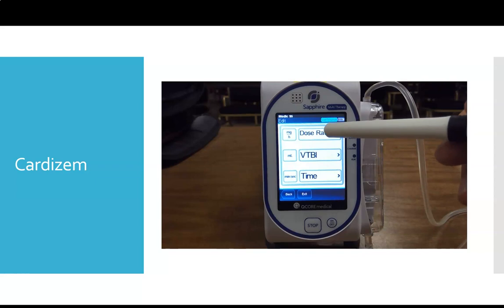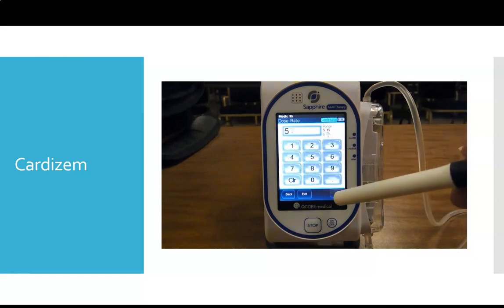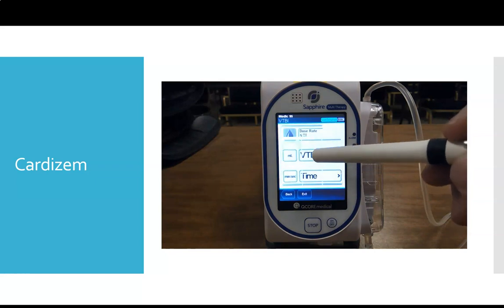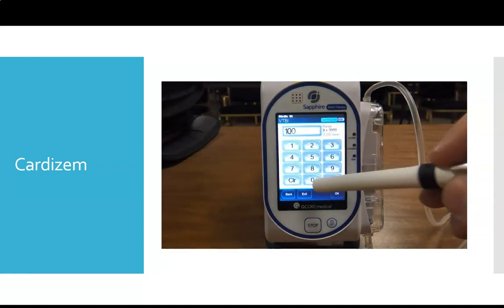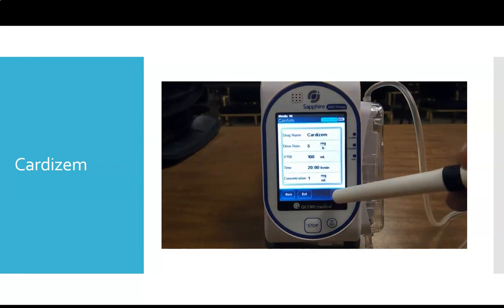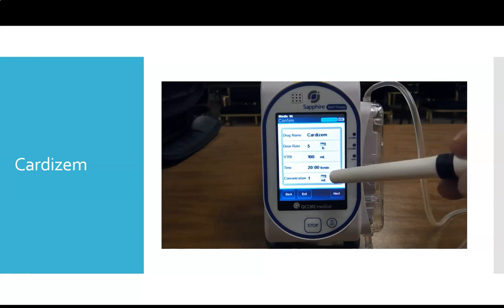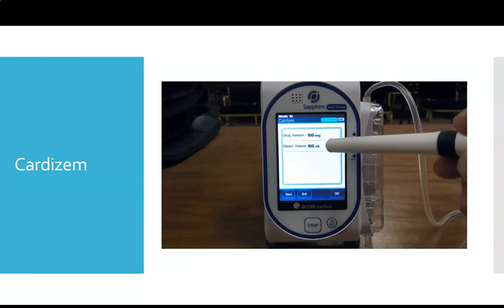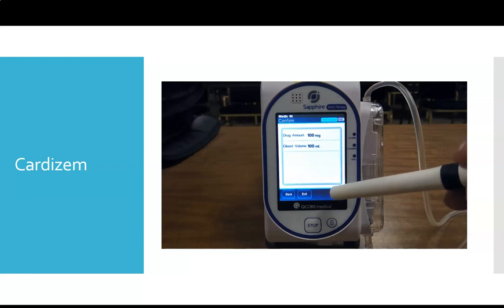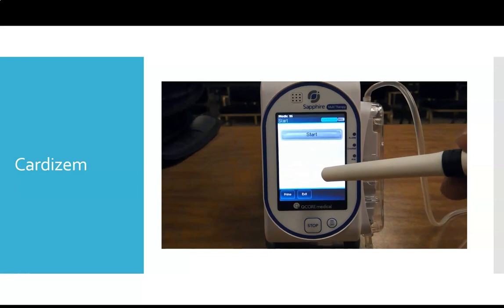Whenever we see the screen, we have to enter in 2 out of the 3 items. So we're going to enter in our dose rate. Now, even though you're going to give the bolus first, you set up the infusion first. So we set up that 5 milligram per hour infusion. Our total volume to be infused is 100 mLs. And it's going to do the math on there at the bottom, how long that'll last. We're going to confirm Cardizem, 5 milligrams an hour, 100 mLs, and our concentration was 100 milligrams per 100 mL, so 1 milligram per milliliter. We're going to start our infusion.